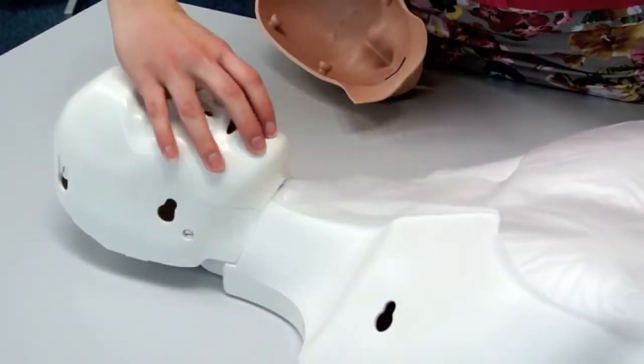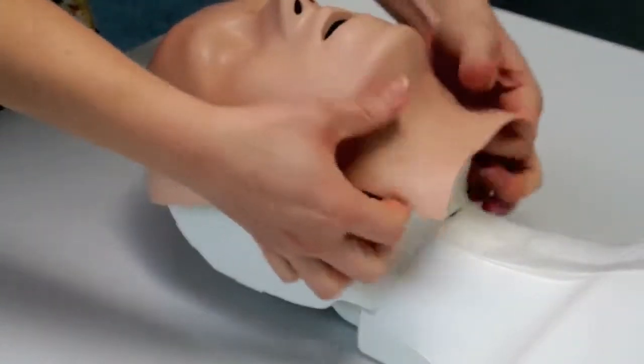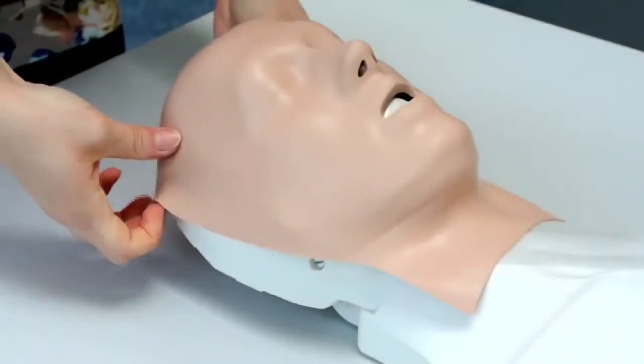Make sure that the lung bag lays flat once in place. The face and thorax skin should then be reattached.